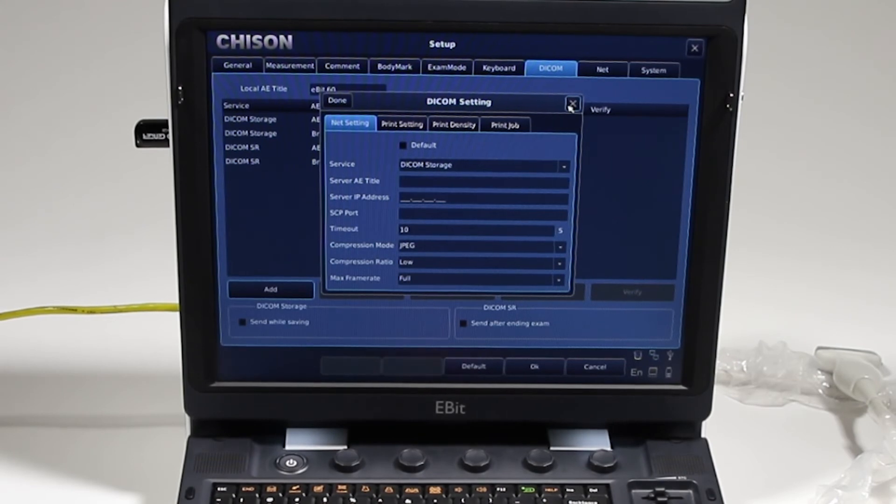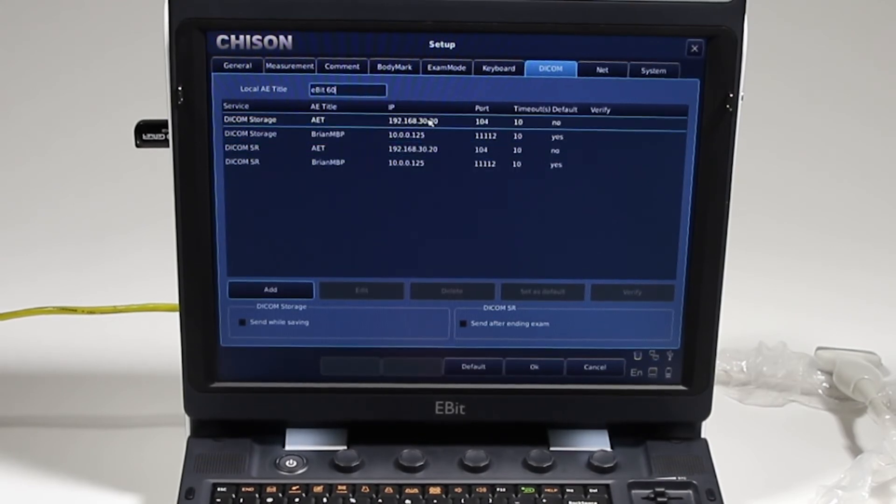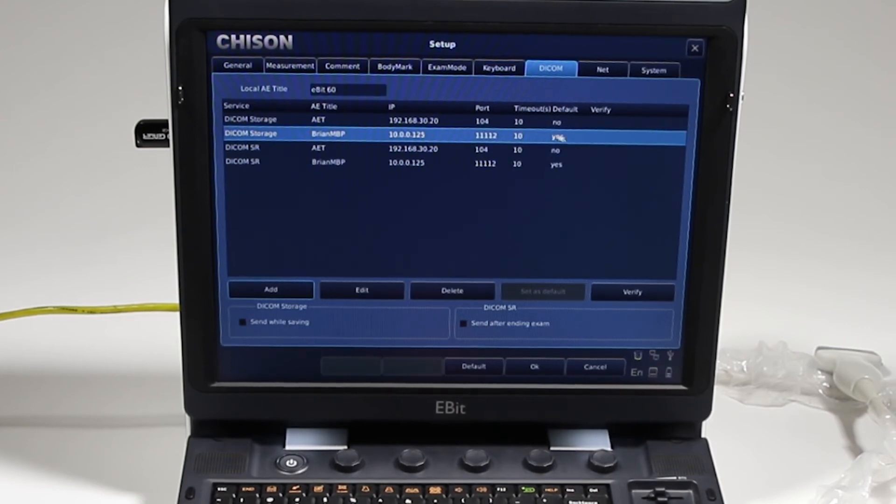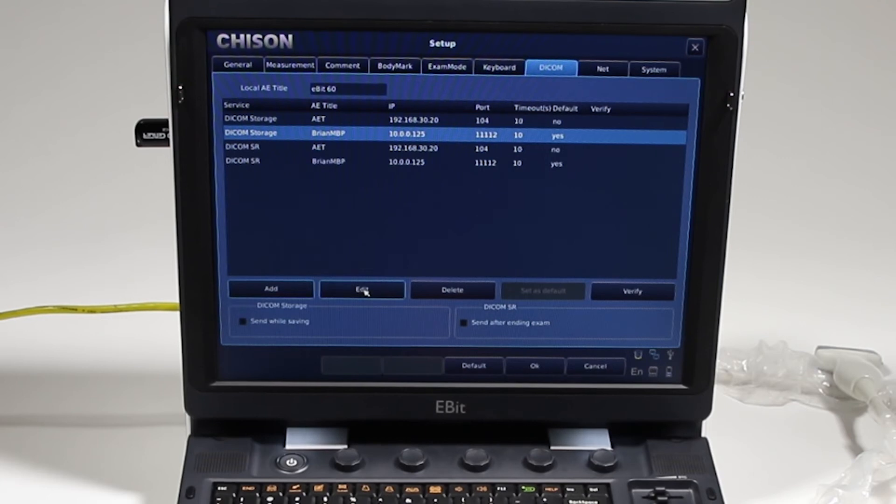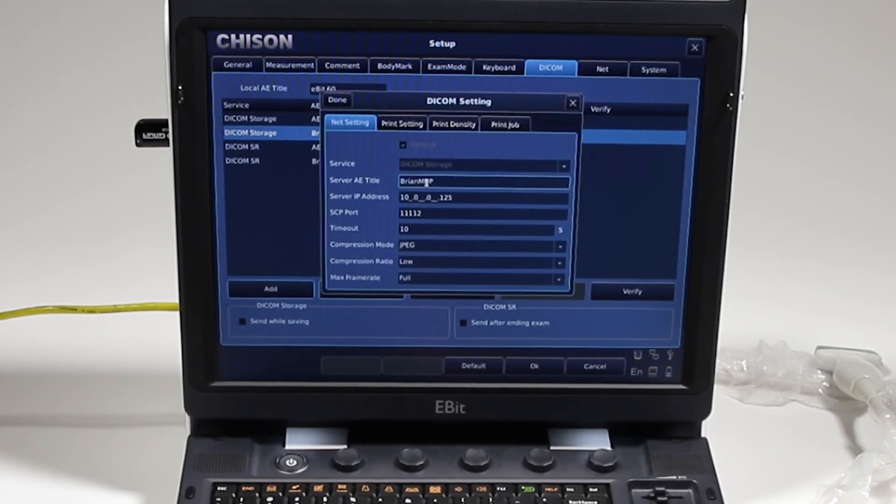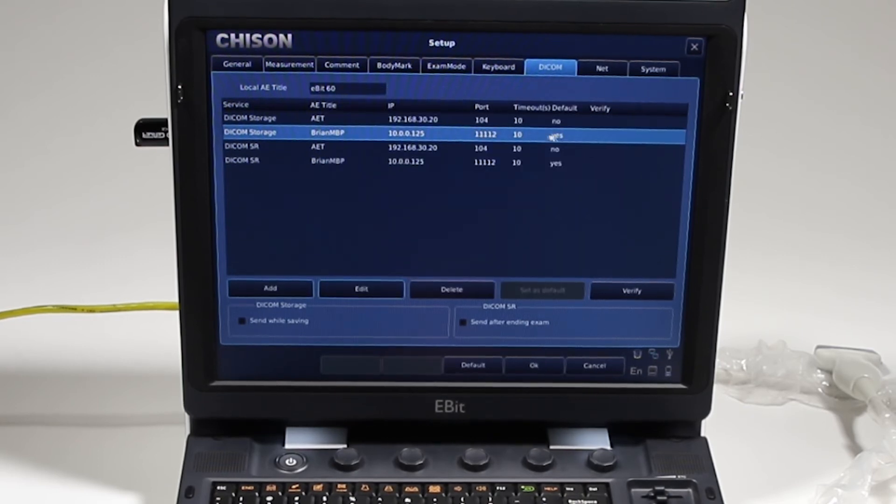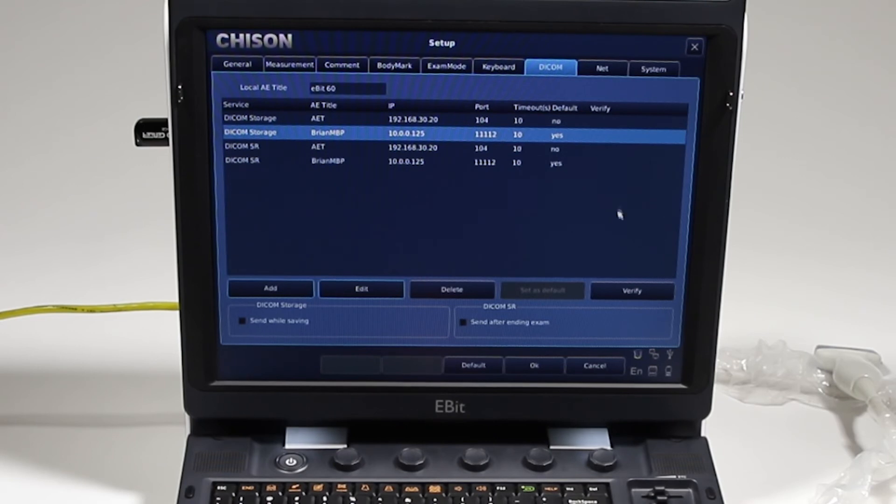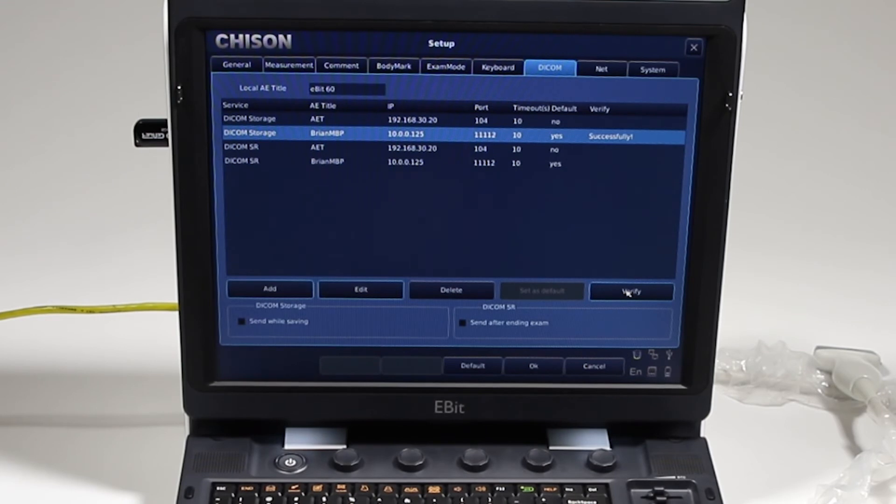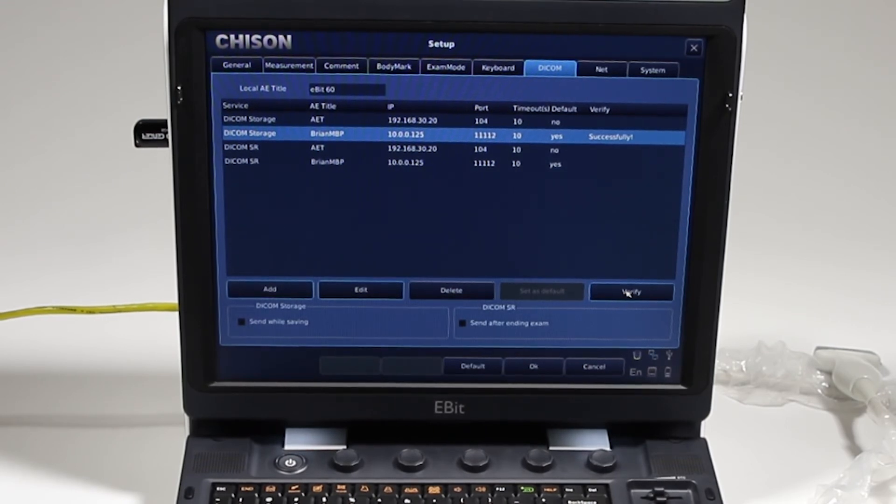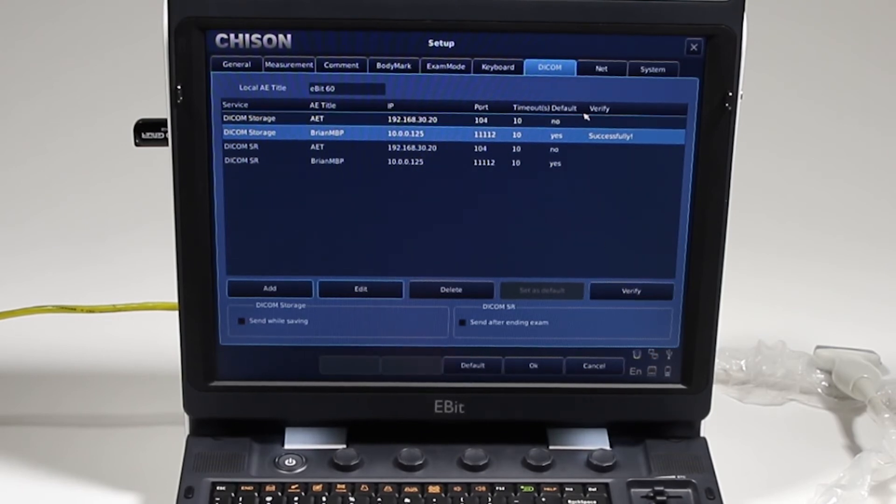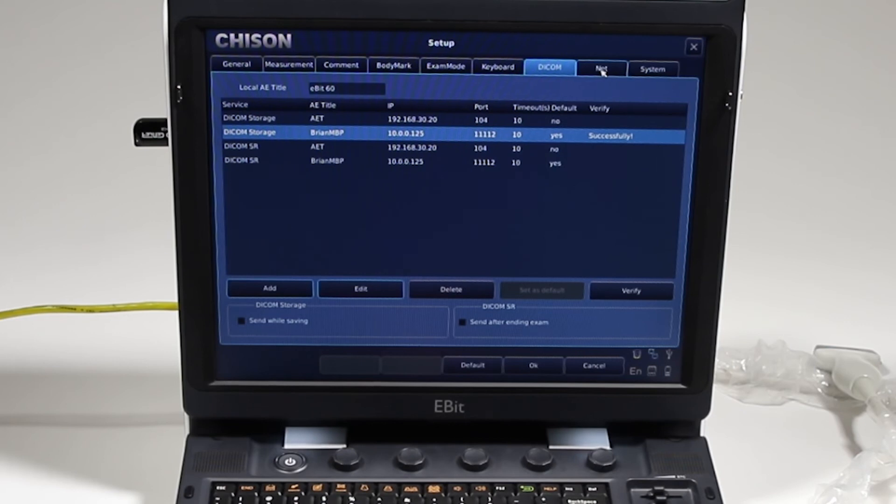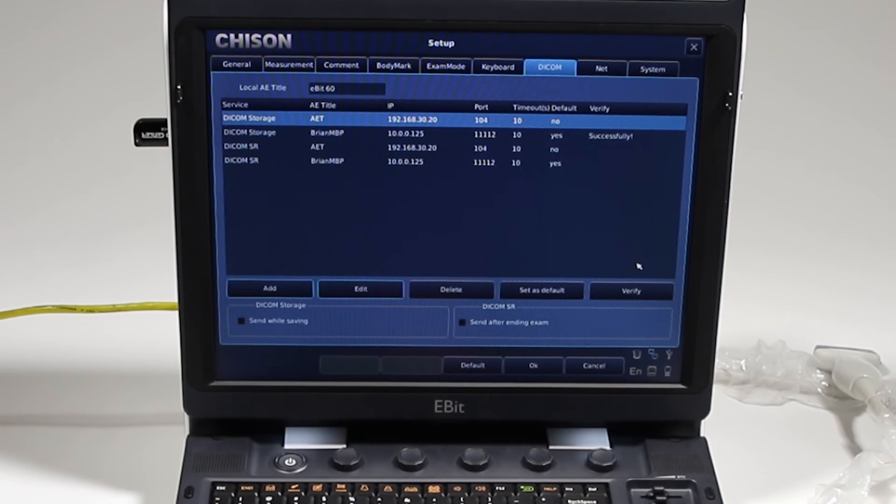So as you'll see, I have multiple servers set up in different places. So this one is the one I have set to default. It shows that it's true. Now once you add that DICOM, let's say I went ahead and added all this information here. Here's my DICOM information for my local server. I click done. Now, if I don't click verify, it's not going to work. So after this is done, I have to click verify. It's going to contact the server and say yes, it was okay. Now if it is not okay, you may not have set up the network yet, which is the next tab over. Well, let's go to the network real quick and I'll come back to this. For example, like if I do this DICOM storage here and I click verify, it's going to fail. You see it's taking time. I'm not going to wait for it. Oh, there you go, it says failed.